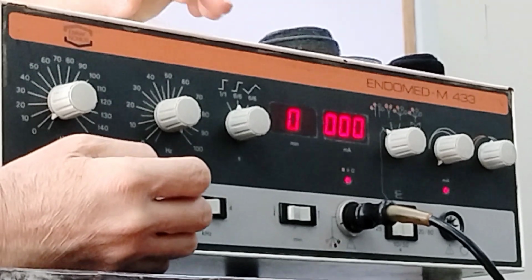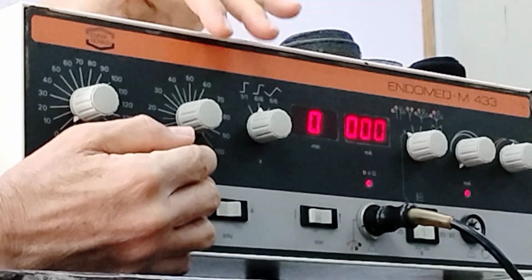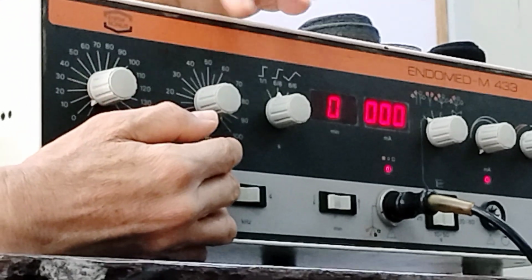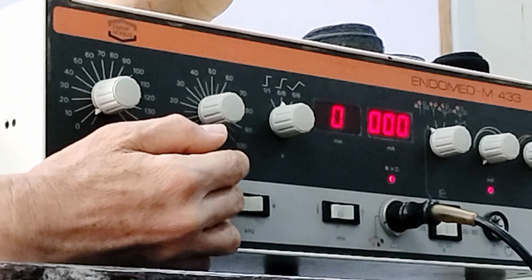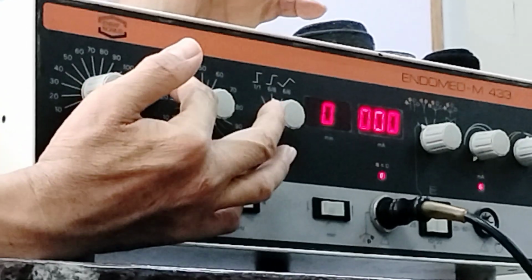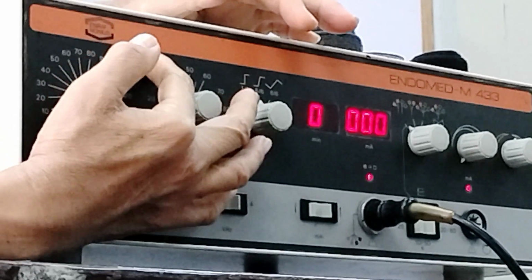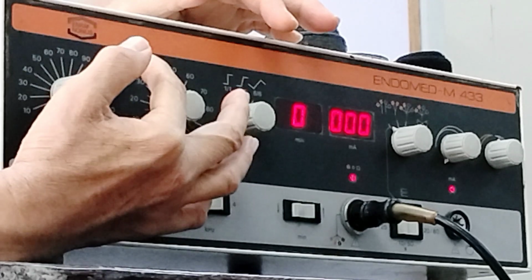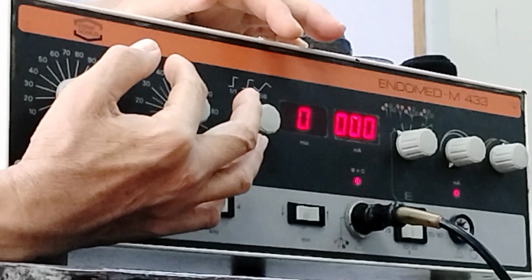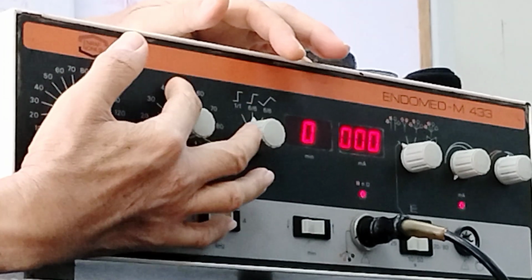Okay, if ever, let's say, you forget those values there, say the condition, or perhaps you have no source or frequency for how to reach the frequency there, you can also base it on the stages of lesion: acute, subacute, or chronic. The same here, if you're going to look at it, you have 0 to 100 Hz, right? So you can divide it into 3. You can have 1 to 33, another range would be 33 to 60, perhaps another is 60 to 100. You can divide it by 3.